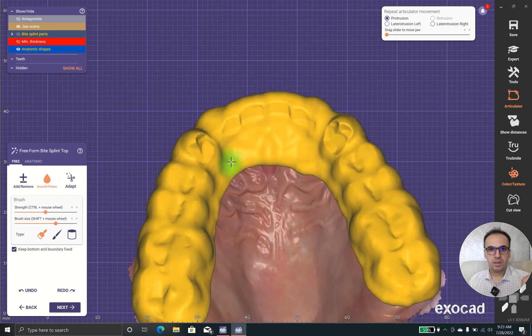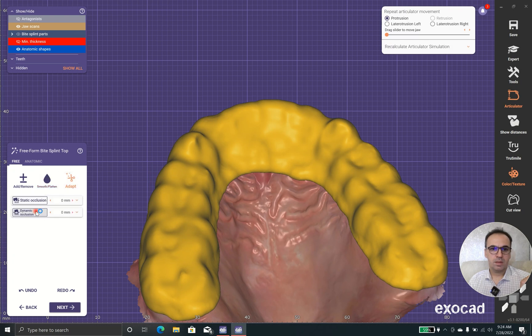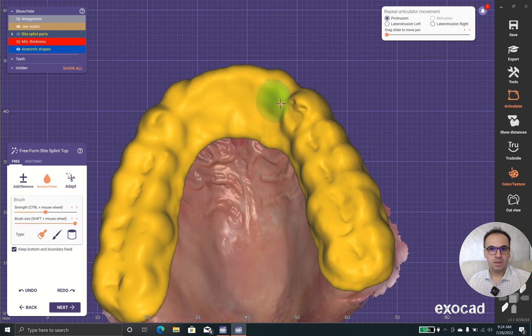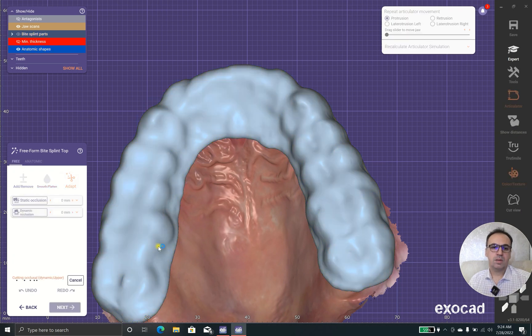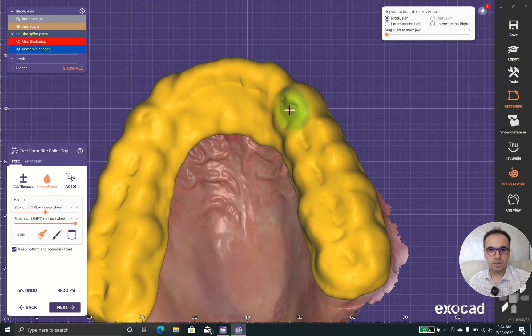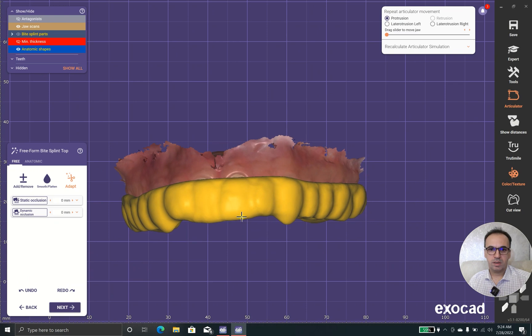Now we will get to the smooth surface — the surface should be smoothed because the tissue shouldn't get caught. Okay, it looks perfect and we have the canine ramp.